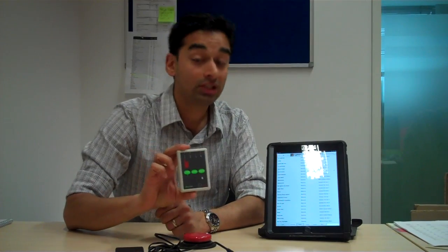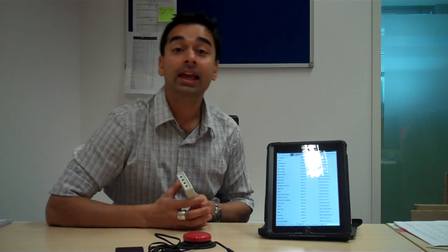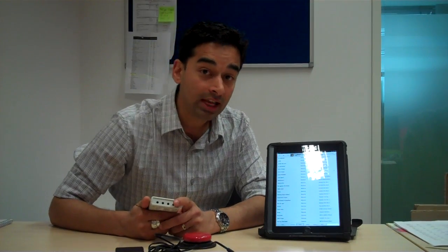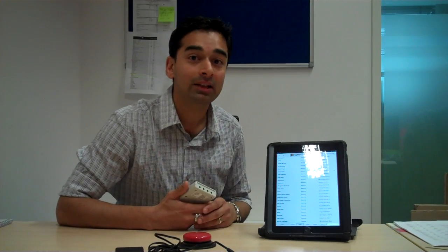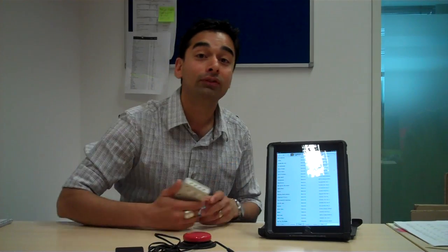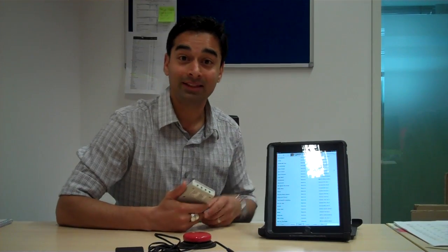That is quite simply the functionality of the Applicator. We really like it because it's quite intuitive, very simple, and a very good-looking device to use. It works with iPad, iPods, as well as iPhones. In the UK, it is available through TherapyBox. You can contact us at info@therapy-box.co.uk or visit our website at www.therapy-box.co.uk. The price for this particular product is £129 and it's available right now. We would be very keen for you to get in touch with us and let us know your thoughts. Bye.